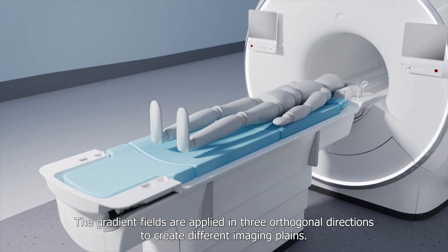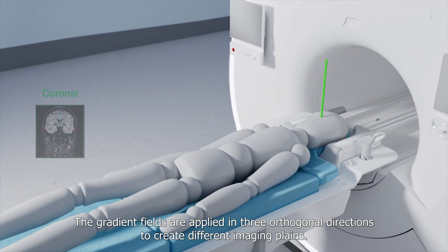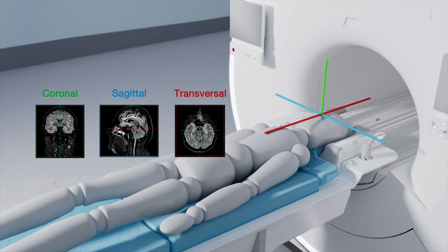The gradient fields are applied in three orthogonal directions to create different imaging planes. The gradient fields are switched on and off during scanning.